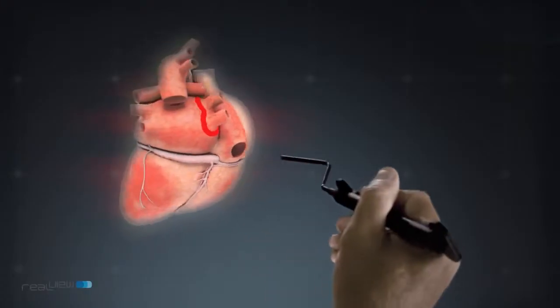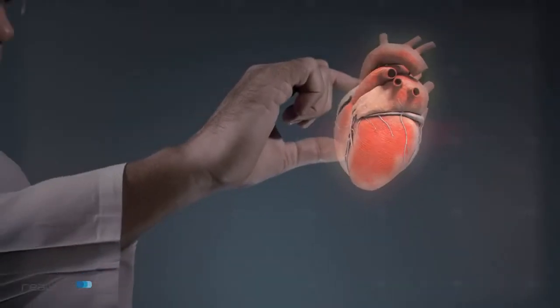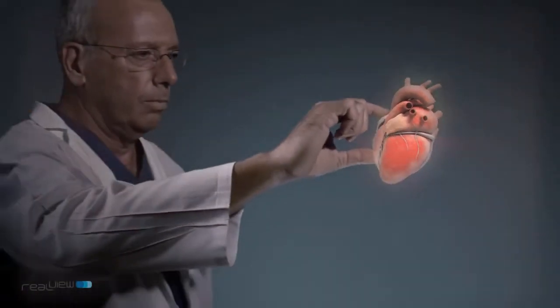You can mark a point or draw a path in the hologram and tag specific anatomical landmarks in mid-air. These capabilities can be extremely useful, for example, for mitral and electrophysiology interventions as well as for many other medical applications.